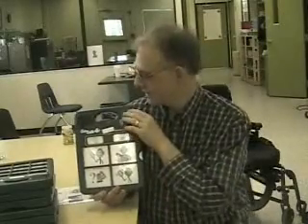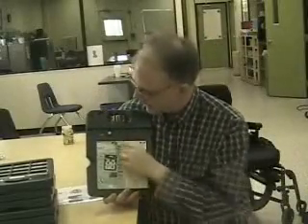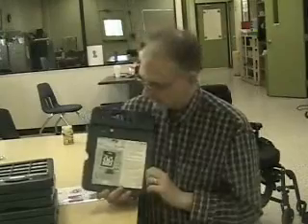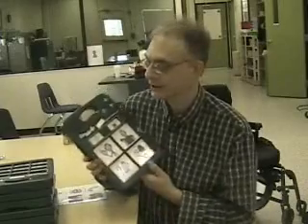I have the levels here. I've got volume control right here on the front. On the back, we have the on/off switch right here, and then we have a record button. And then you have this thing that's really hard to get to — you need a paper clip — called an erase that'll just erase the whole thing. Those are the basic components of all of the GoTalks. The microphone is right here, so when you record a message it'll appear right here. In fact, let's go ahead and record one.